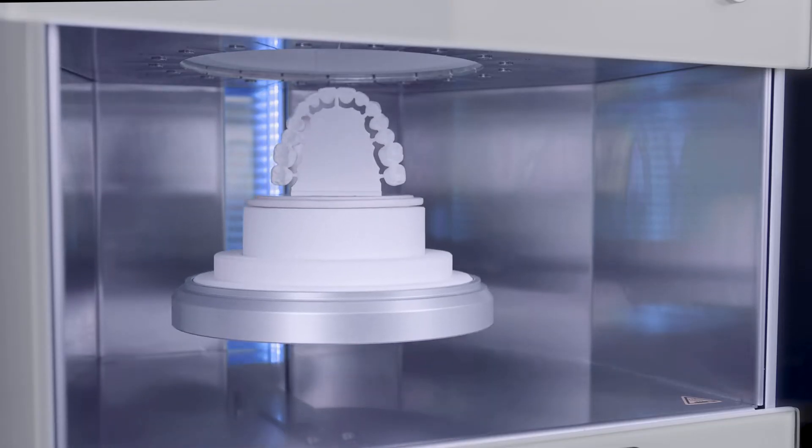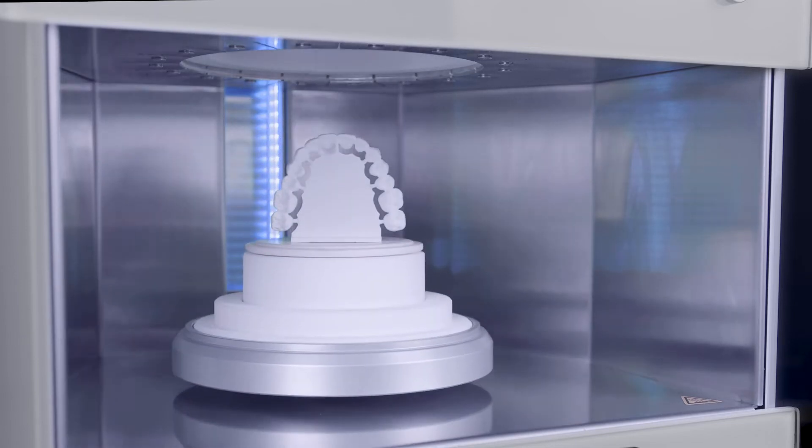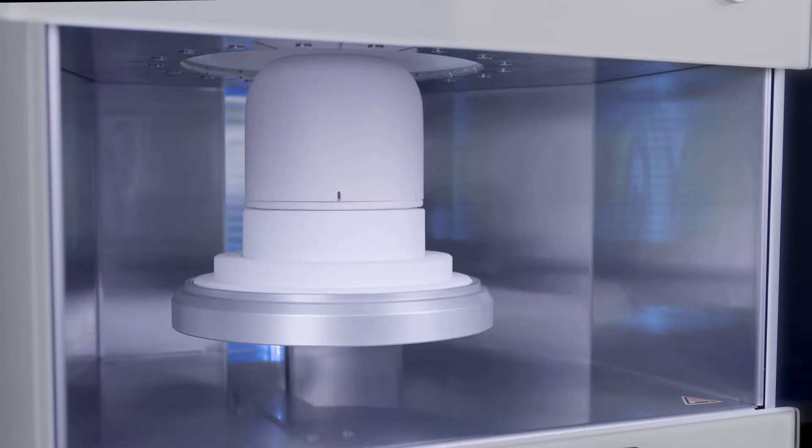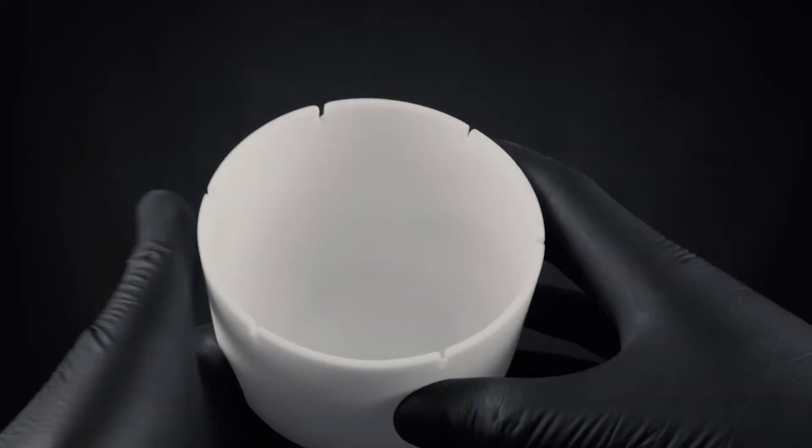To protect the structures from discoloration or contamination, we recommend covering the bridges with a ceramic protection cover. Its curved surface guarantees perfect heat distribution inside.